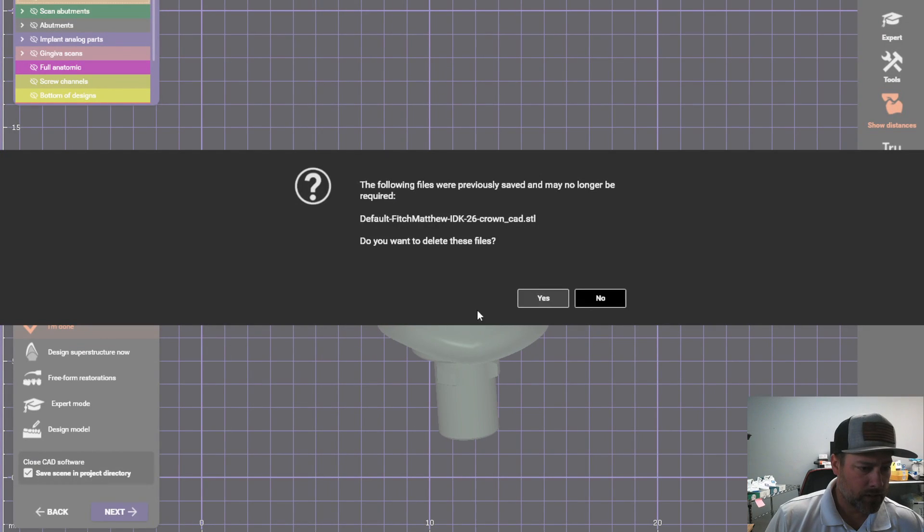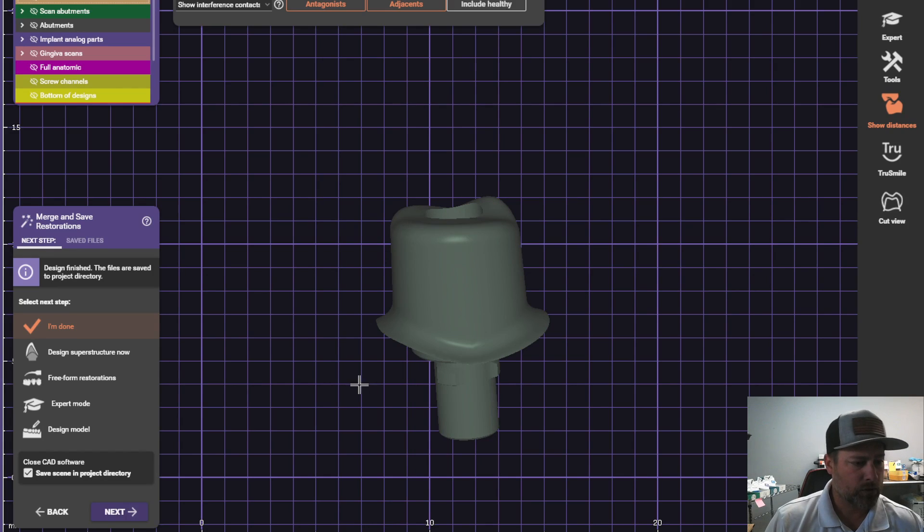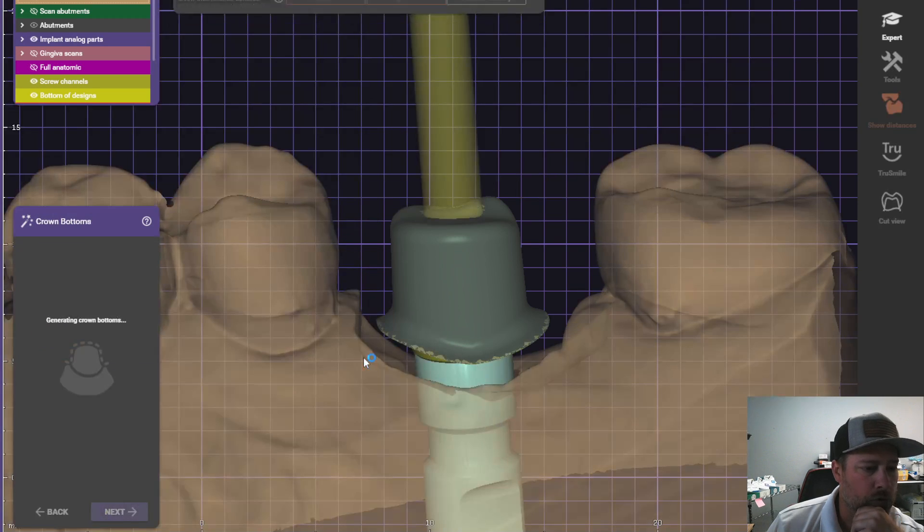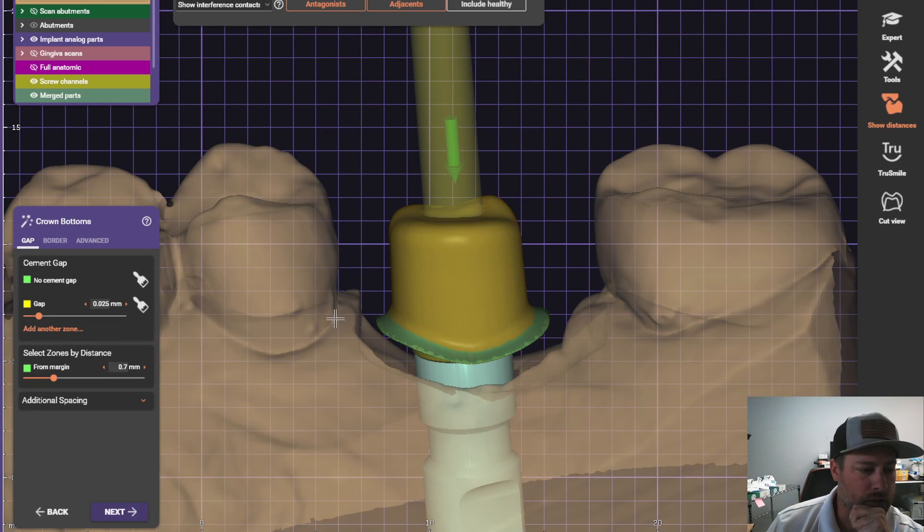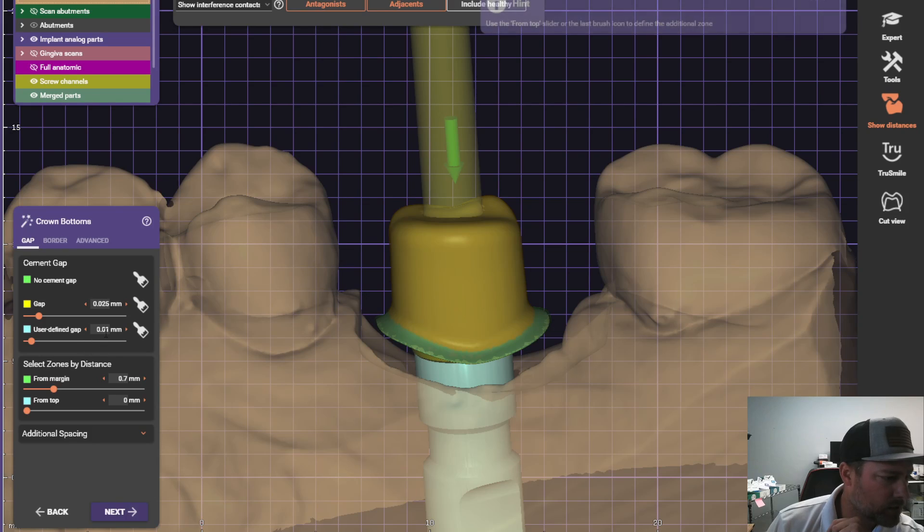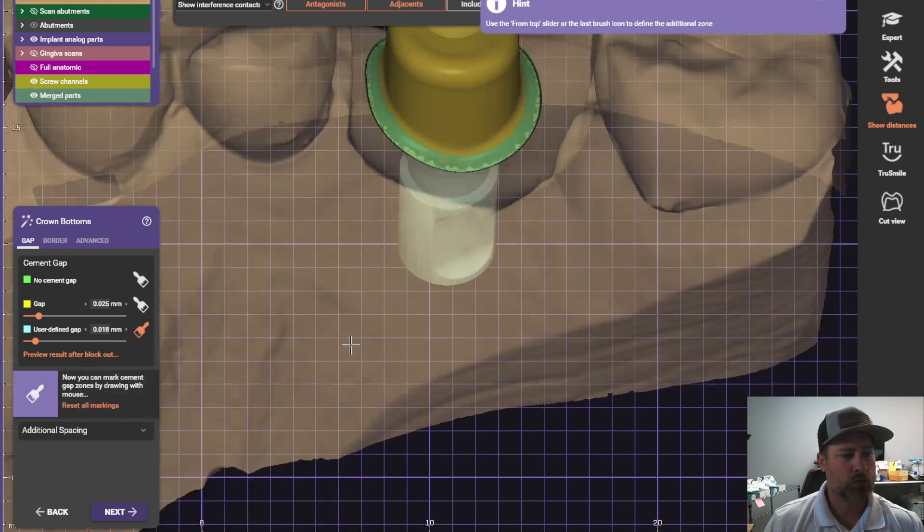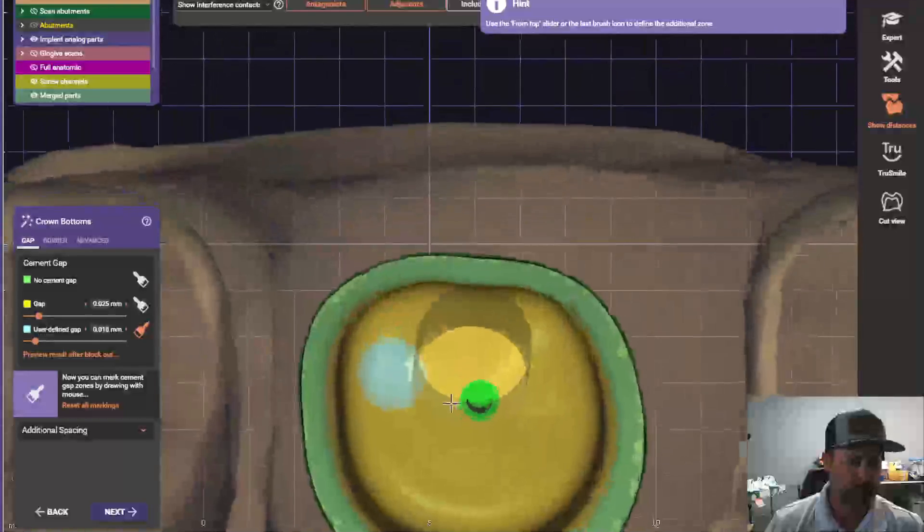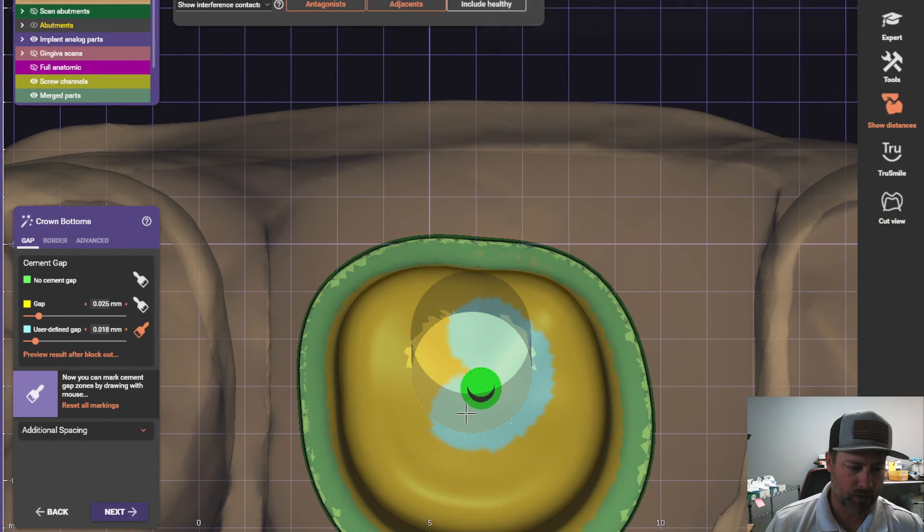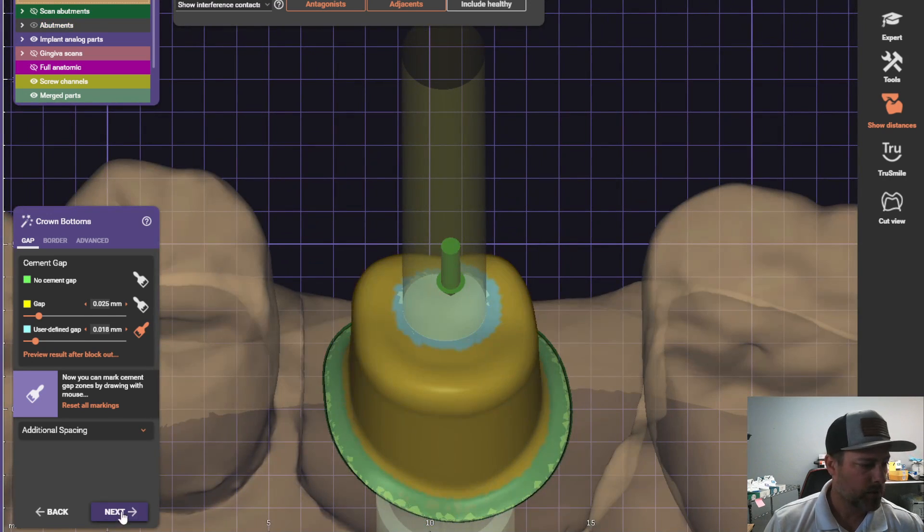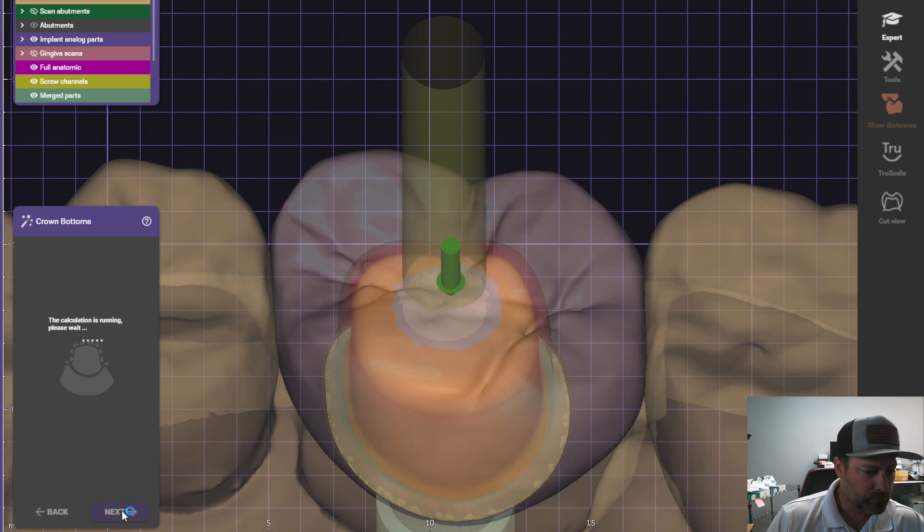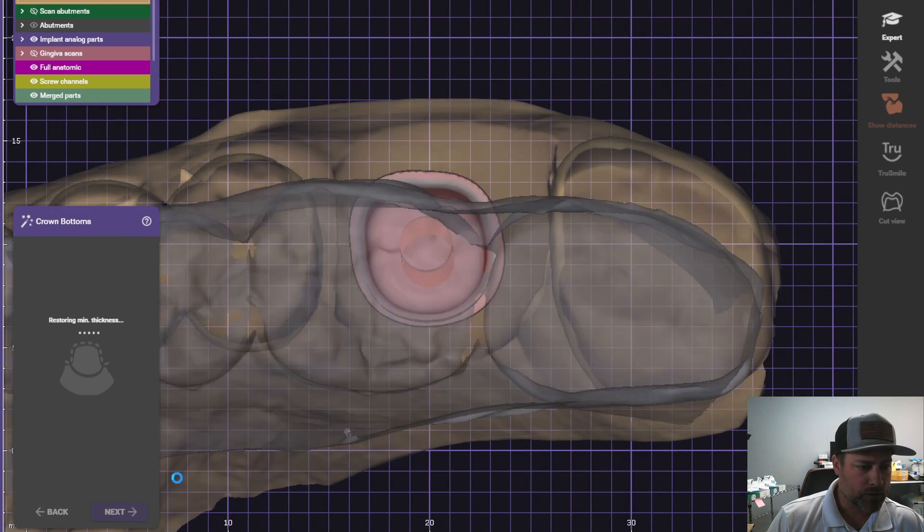If you need to, I didn't need a free form, so that wasn't a big deal. But we want to make sure that we need to punch the hole through the crown for as a screw-retainable. I'll show you how to do that real quick. These are just the basic settings that I use. I always add a little bit of extra gap right where the screw hole is in case it doesn't get milled out perfectly. There's a little room for error right here. Okay. Go ahead and finish this up.